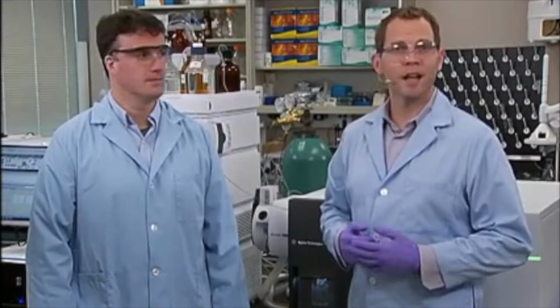We're sharing a full workflow solution with you, demonstrating protein precipitation and analysis, specifically looking at a pain management drug screen. In Part 1, we showed the sample preparation, in this case, a simple filtration using Captiva ND Lipids well plates, which helped remove lipids that would have potentially suppressed the MS signal.